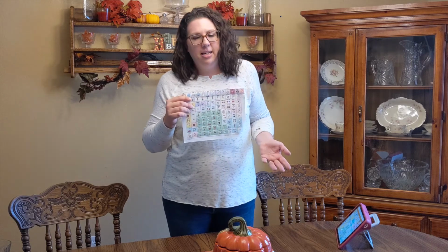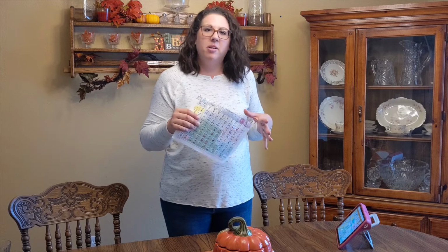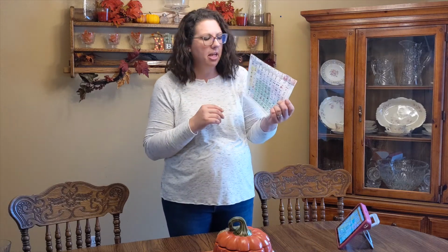If you haven't watched my other videos, please go do so. But in there I talk about how we have these posted around the house in different rooms to do just that, to provide that access to our son to help augment his speech and help supplement it. So these are a great alternative. They're reproducible and they don't get in the way too much. So you can just lay it on the table, and it could be great for communication. So this is a low-tech menu communication board.